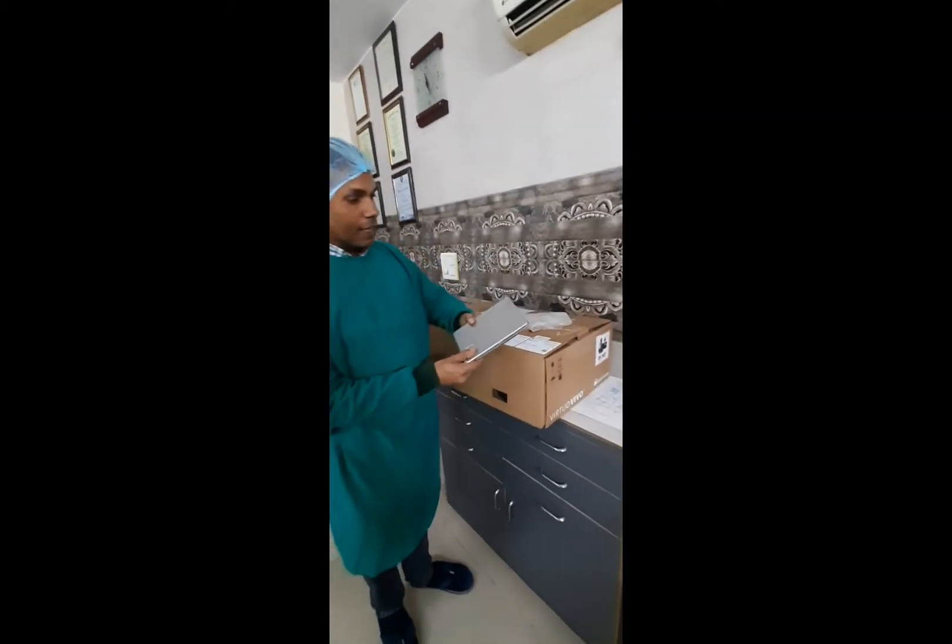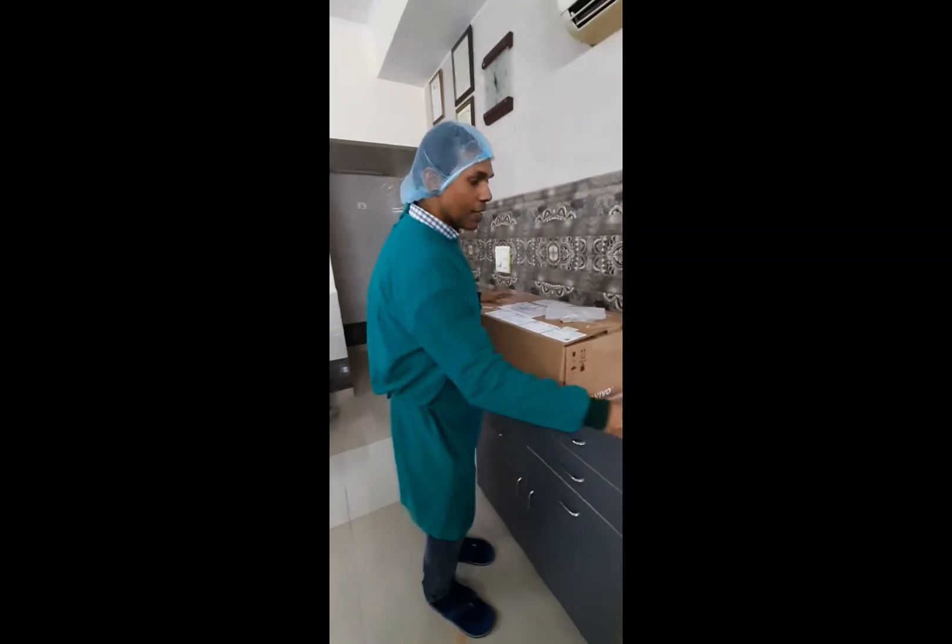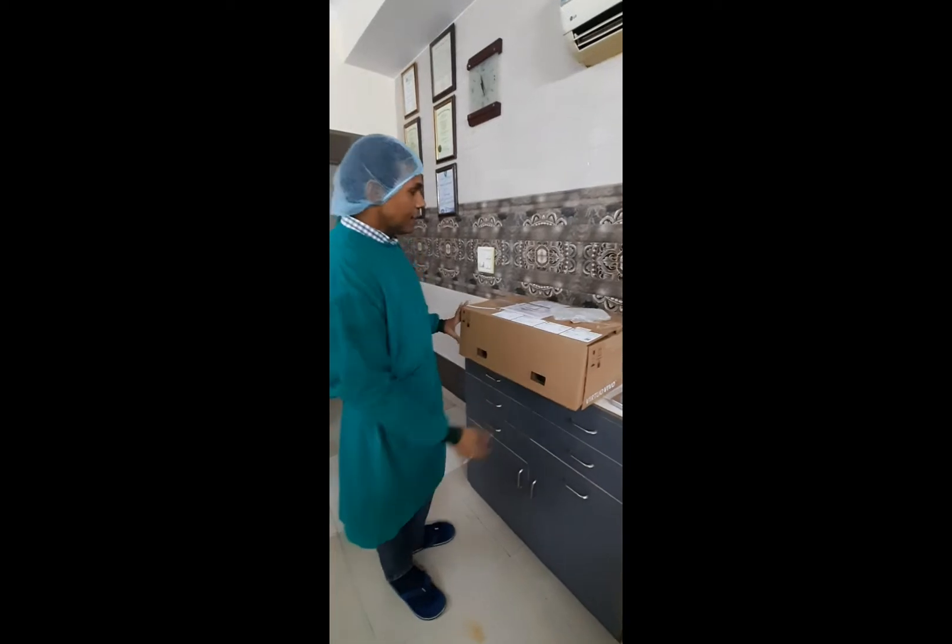The first thing I have seen is the Codiagnostic CD. This is a software for implant planning and also has a number of other uses. We can discuss and make a video on that later — for now I will just be unboxing it.